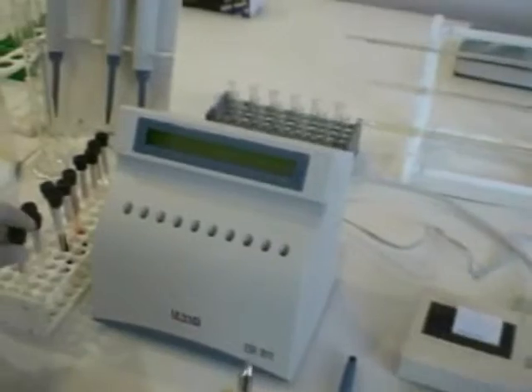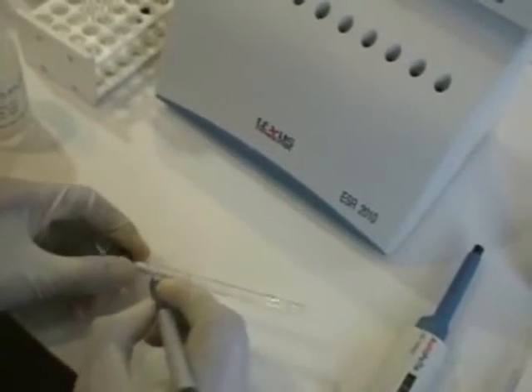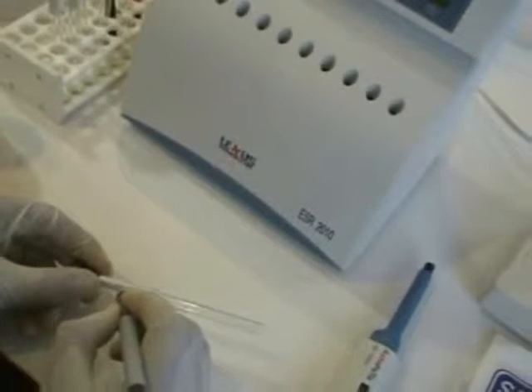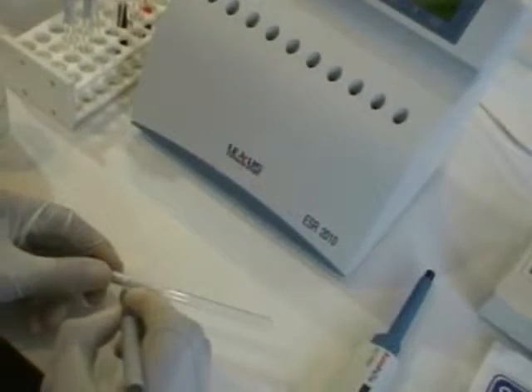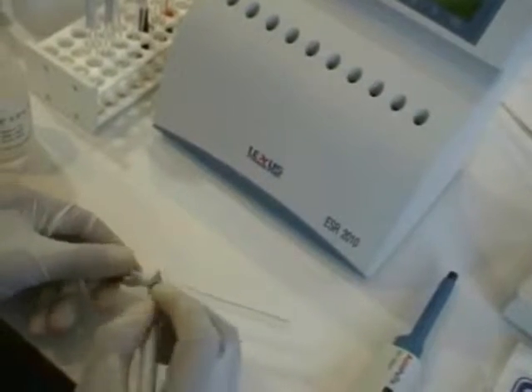Preparation of testing on ESR2010 is as simple as its performance. Label the 120x8mm ESR glass tube with patient ID, name, age and sex.